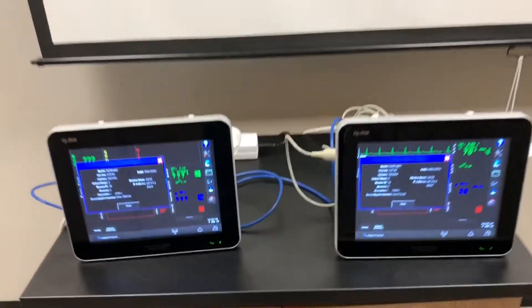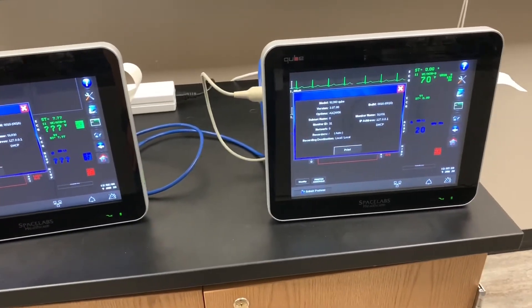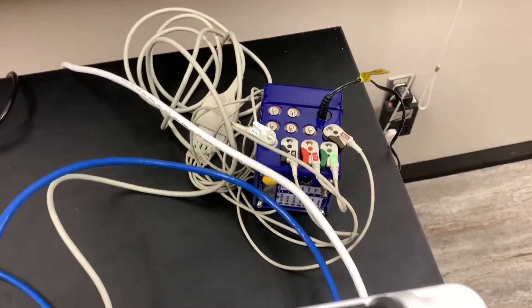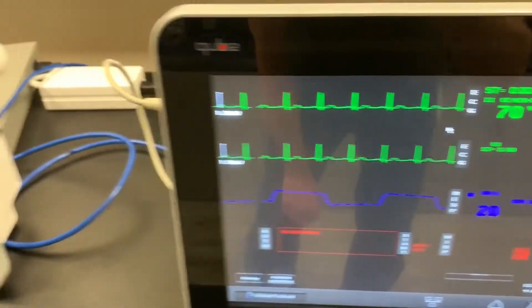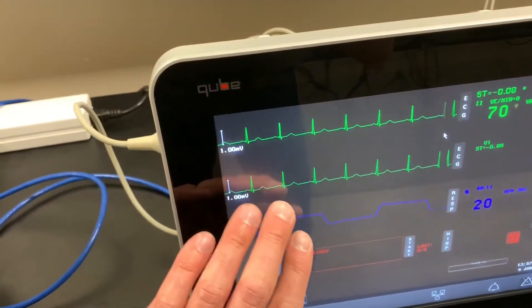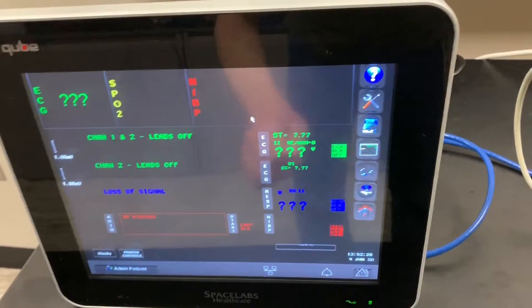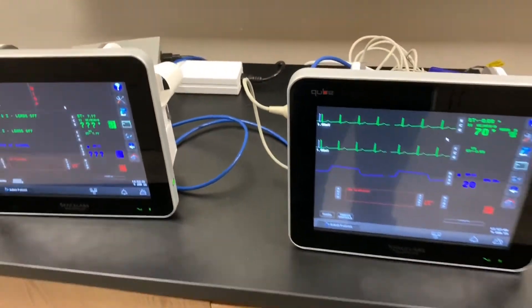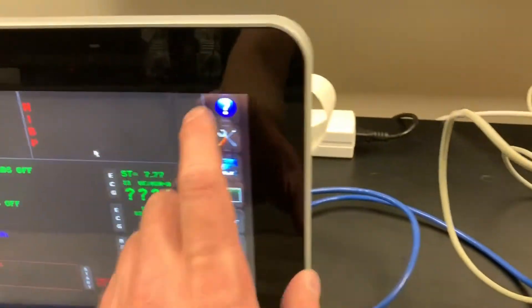As a follow-up to the other two videos, what we can do here is directly network these two ECGs to each other. This ECG is connected to the SimCube, and you can see behind this window it's pulling the trend information off of that. The end goal is to view this trend information on this ECG, and to do that we have to set up static IP addresses so that they can talk directly to each other. I have removed the networking configuration on both of them.